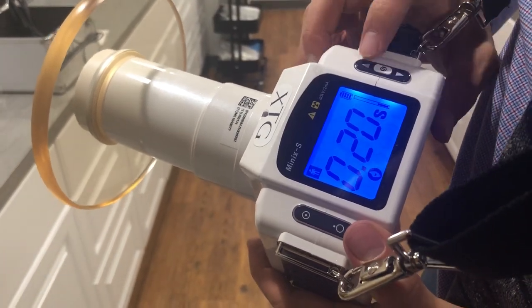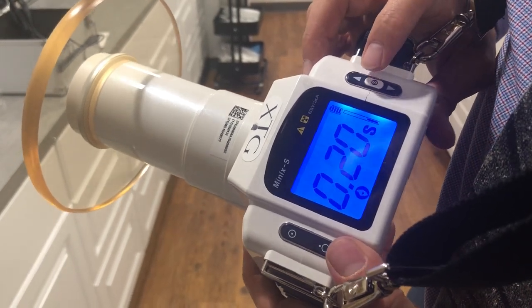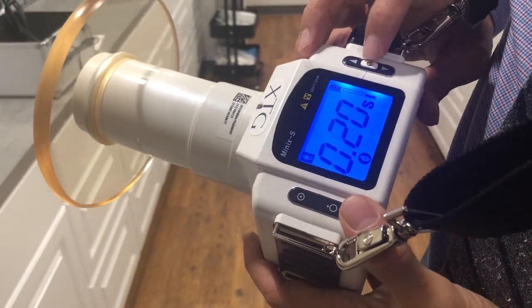Really, that's it. Make that adjustment once, you're set — touch that power off button and you're already set.